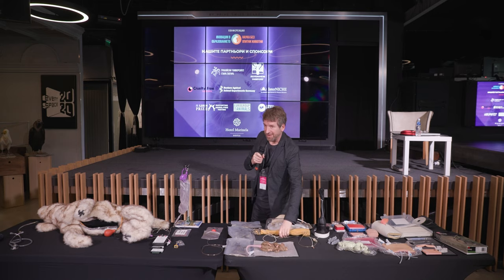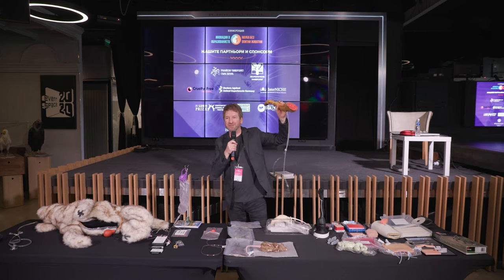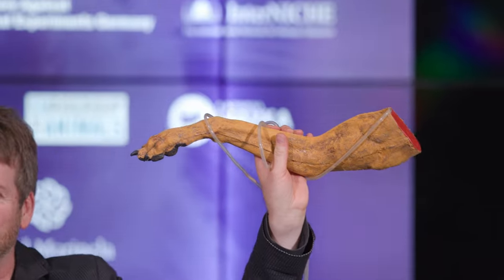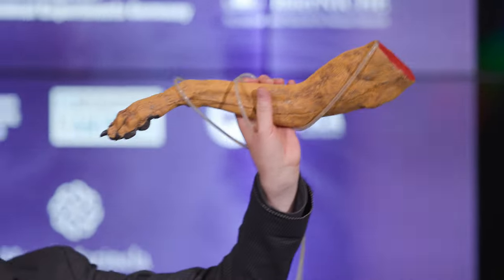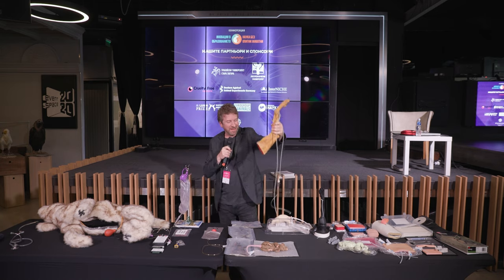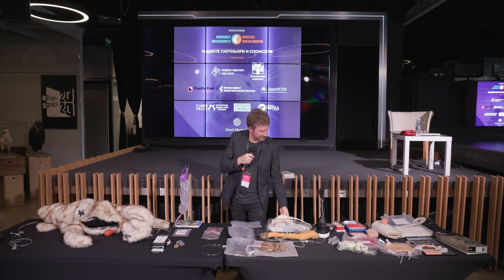This is the Sarajevo leg, which we've had in our loan system, but we're now returning to Sarajevo. This is the leg that was made by Dr. Ibrahim Arnautovic — an early model from this region. And again, you can make these things yourself.